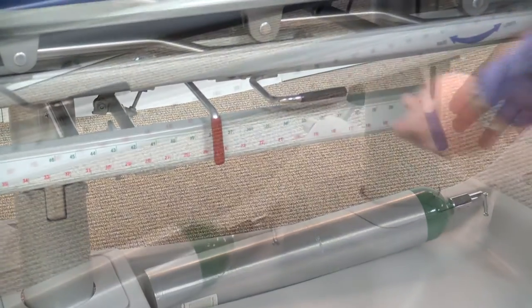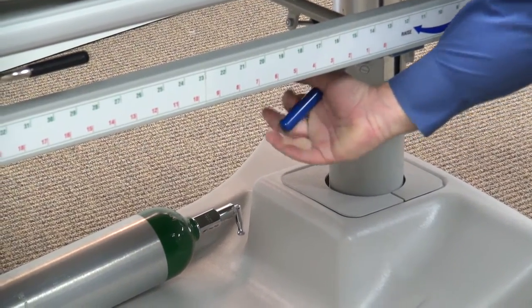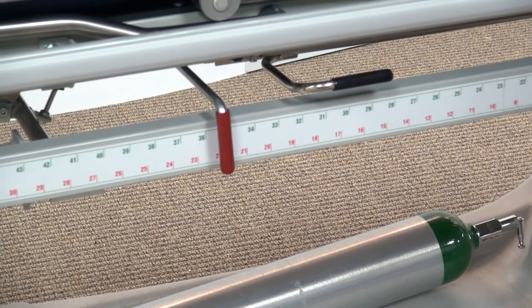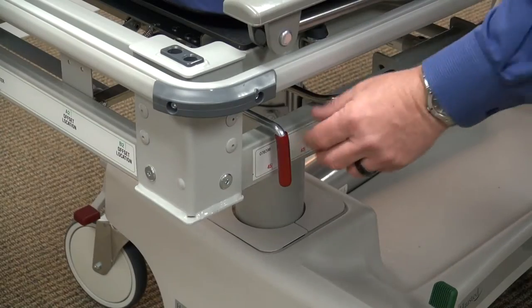For higher quality imaging, the tray system can be raised closer to the patient surface by pushing the blue handle towards the foot end. There are indicators on the stretcher for the film or cassette location. The cassette is designed with a metering system, allowing precise positioning either centered or offset.